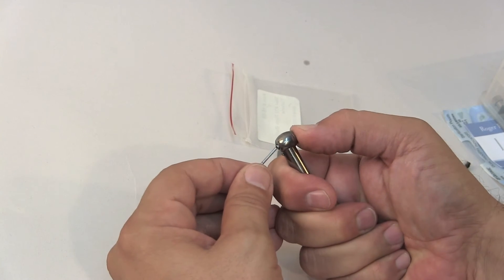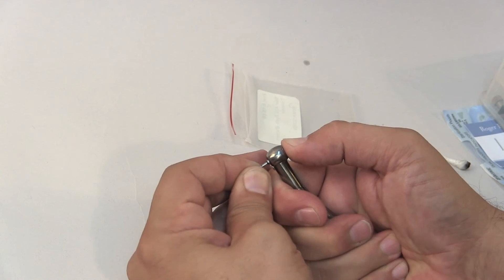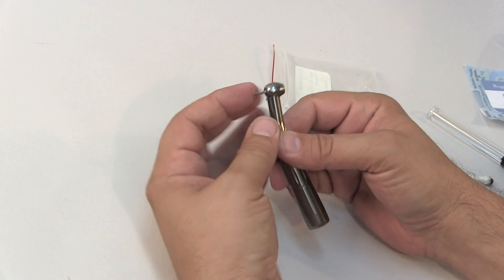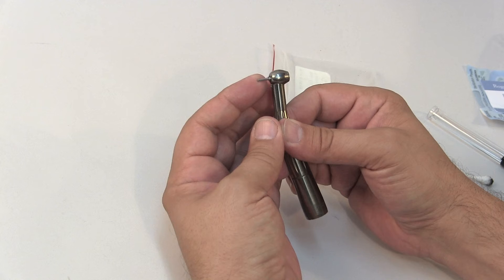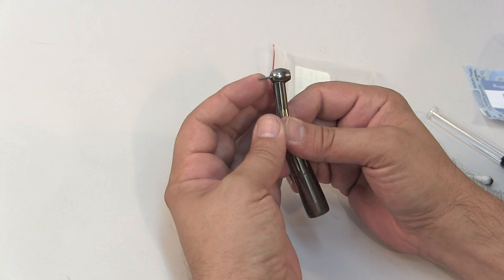Finally, install a burr and roll the burr between your fingers to make sure the bearings turn freely. If you feel any resistance, remove the turbine and reinstall following steps 1 through 3.